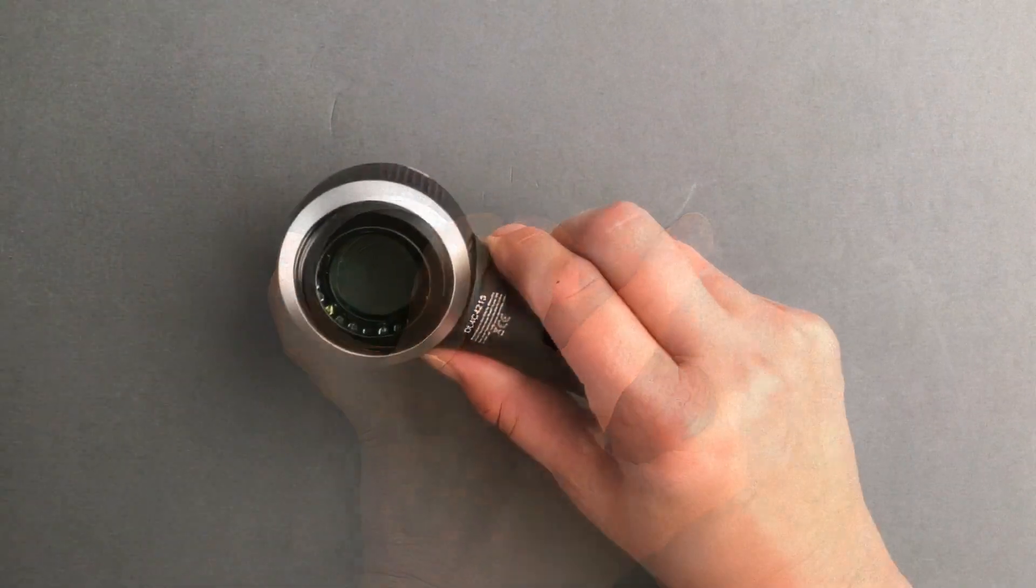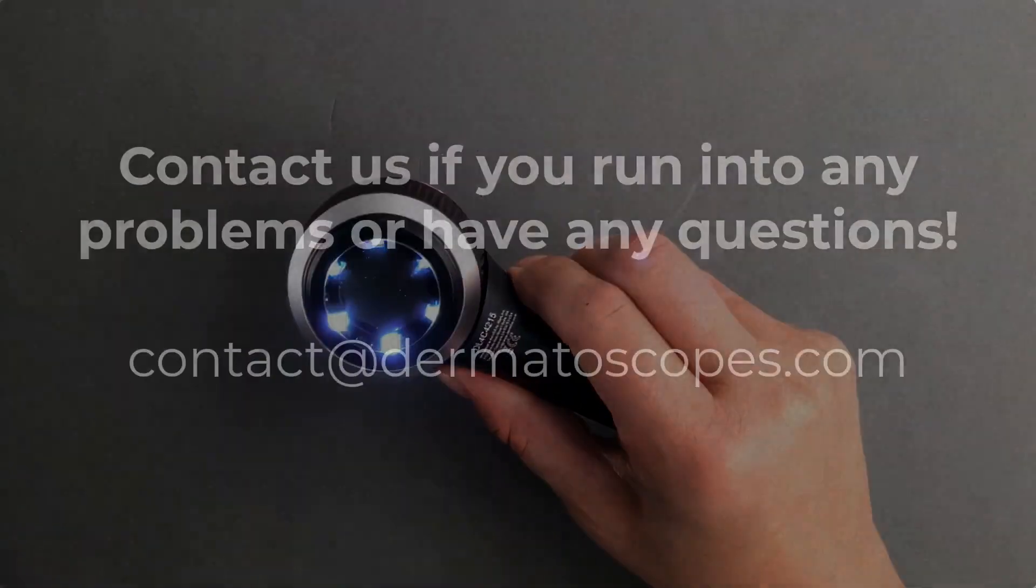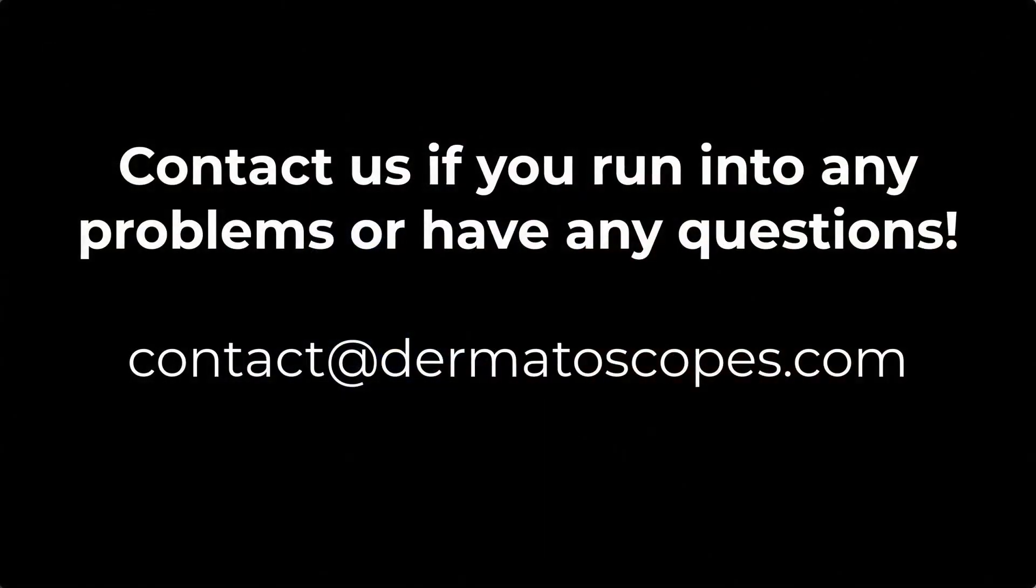And that's it. You can push the power button on to make sure that your device is working. But if you run into any problems or have any questions, just let us know.